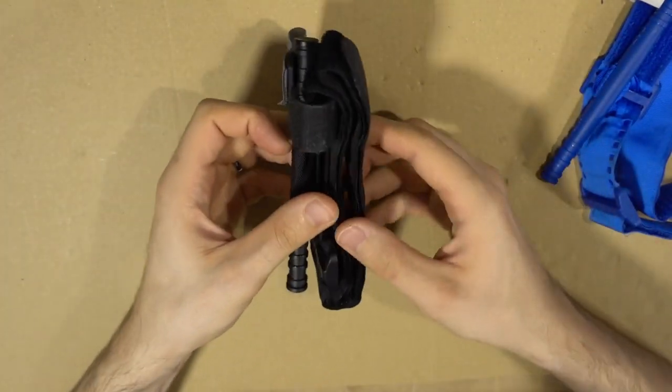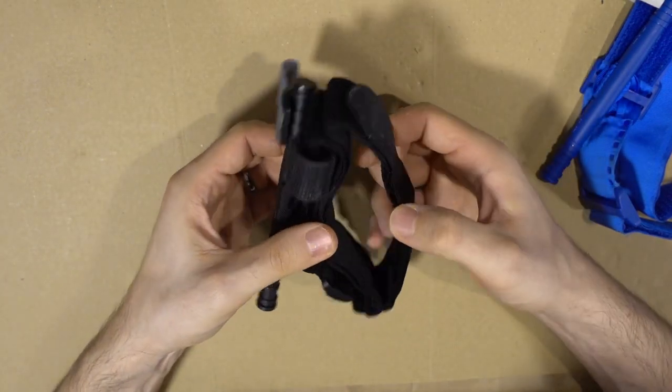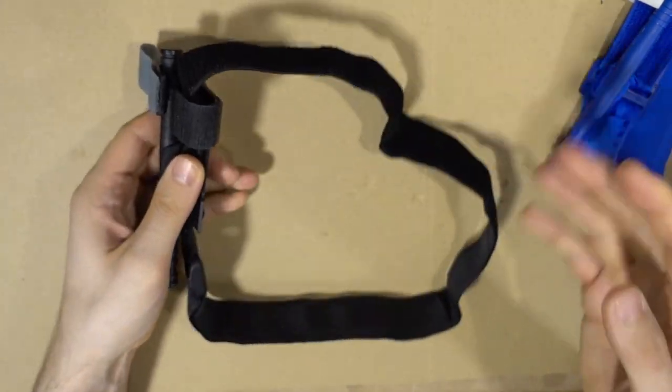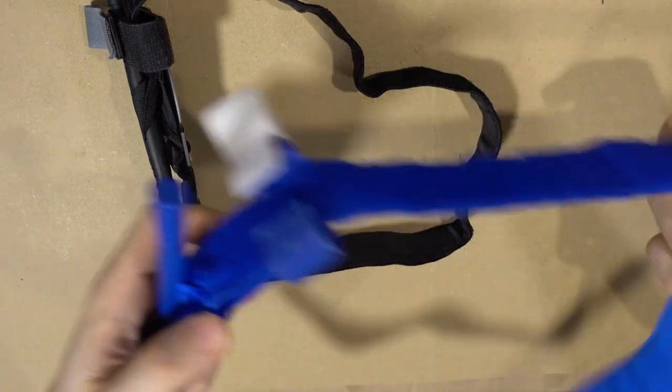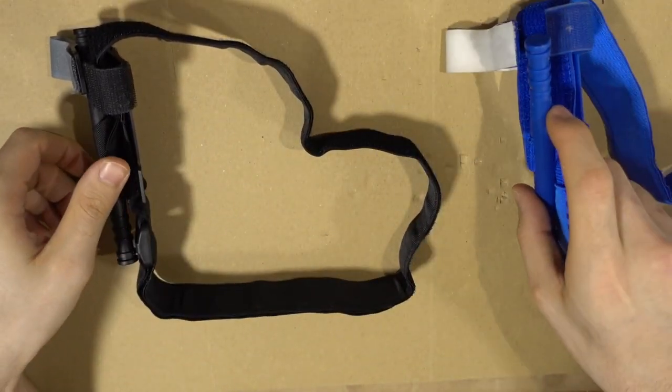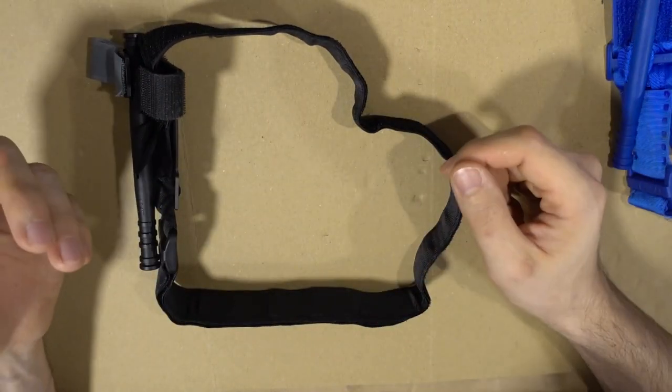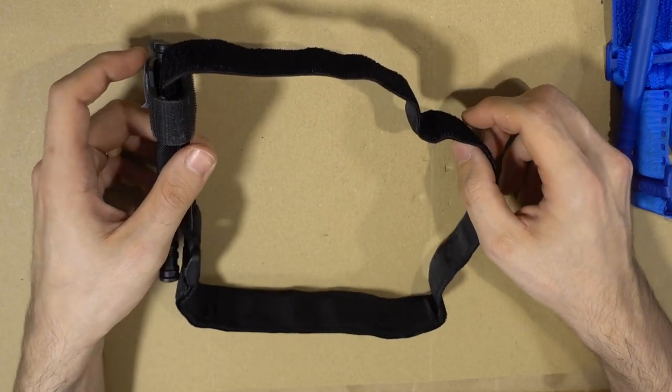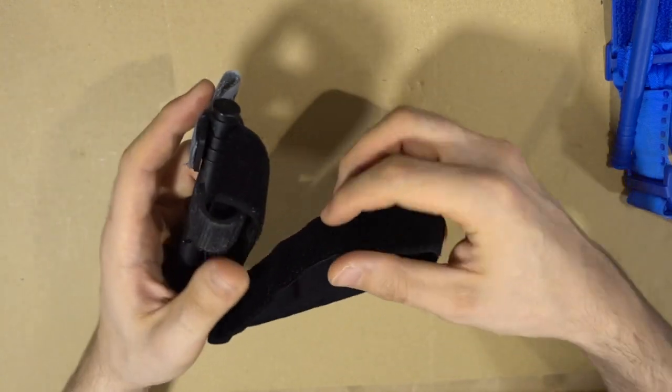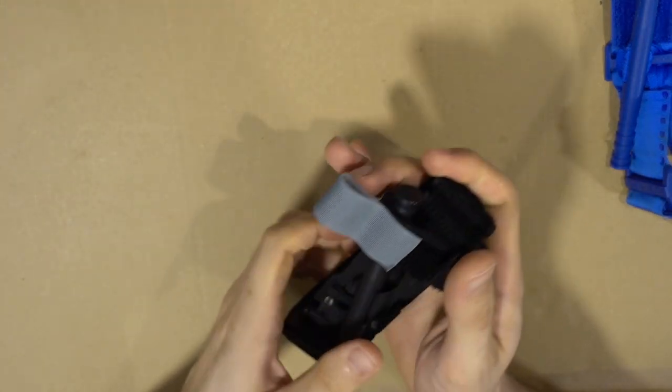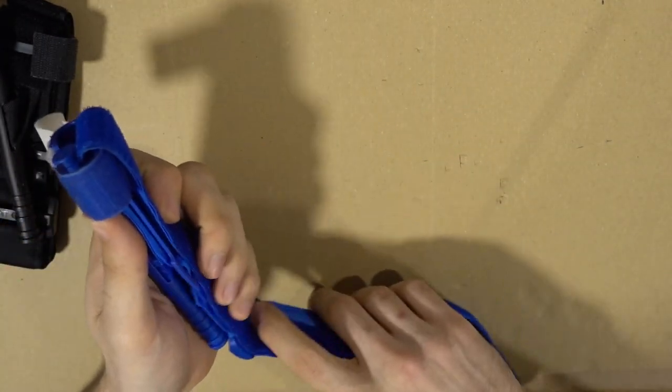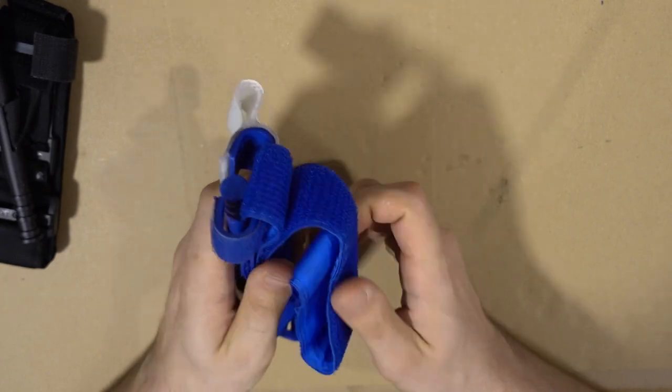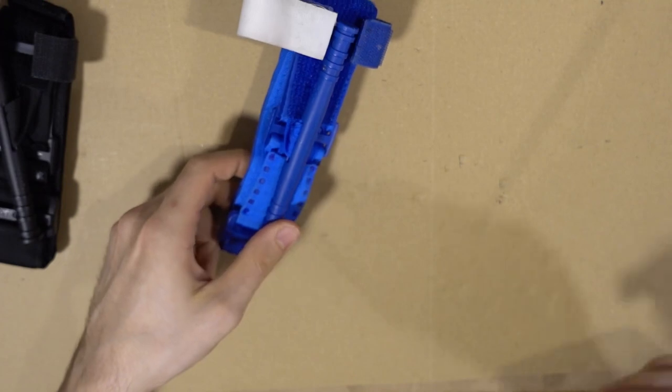They come packaged slightly different. Here you don't have the tab like so, but the principle is the same. You pull and it's open, but here as you can see you don't have the full size of the whole tourniquet. It makes sense to use the full length because if somebody is wearing pants you might not get over it, or the person is a bit heavier. You'll need the full length of the tourniquet. So again, same with the application, it's training. Try what works best for you, try what works best for your specific setup, how you mount it and whatnot.